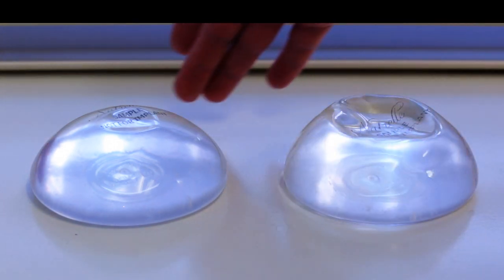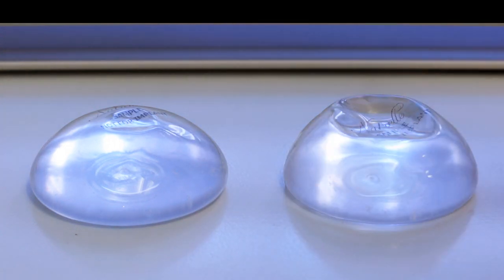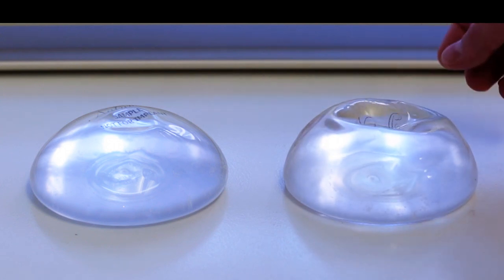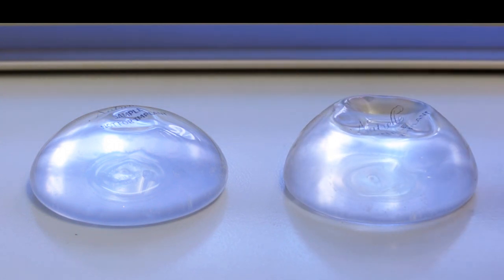And the whole point behind the Inspira implant is to provide us with an implant option that's somewhere in between the extra firm feel of the teardrop shaped devices, which you don't see listed here, and the very, very soft, easy to wrinkle and ripple feel of the traditional breast implant.